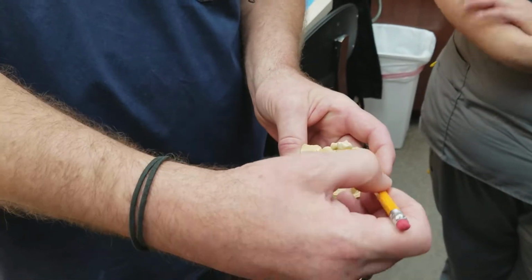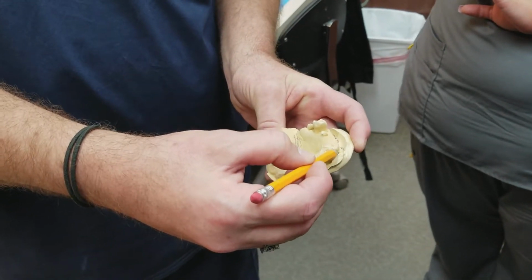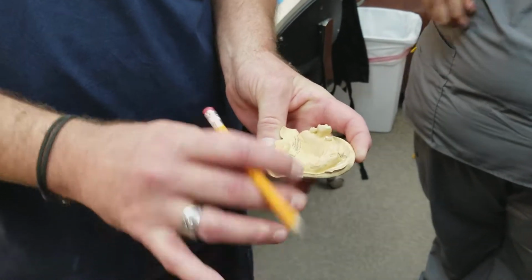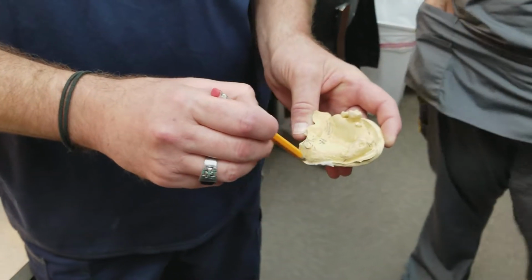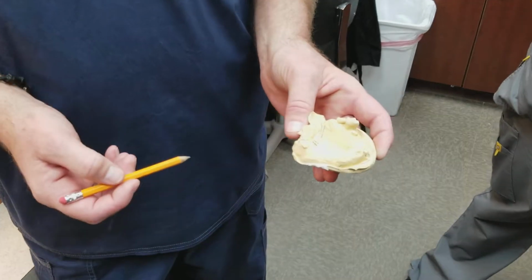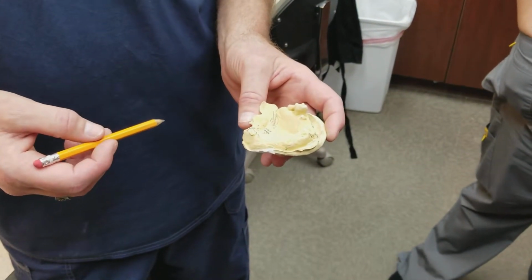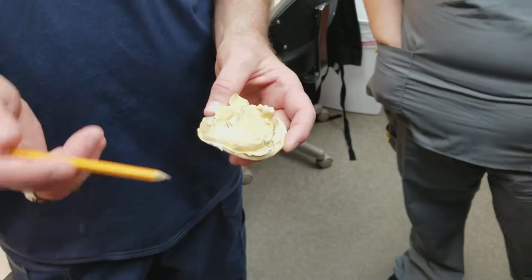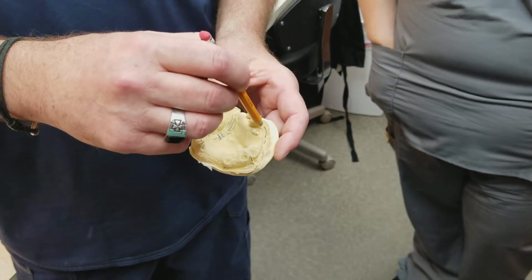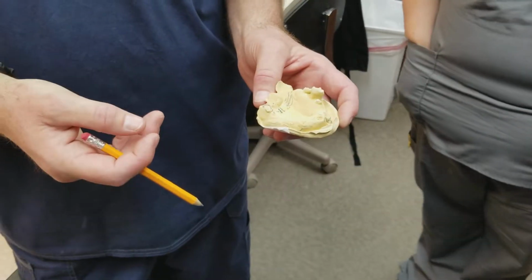And the same with the buccal frenum muscle attachment, the labial attachment. Sometimes they don't have them, but you want to get all that labial sulcus. And then we cut down on making custom trays and so forth. And you don't want to have bubbles in the teeth on anything that's going to be a partial, because when you're trying to clasp something, you have to have the full anatomy of that tooth there as well.